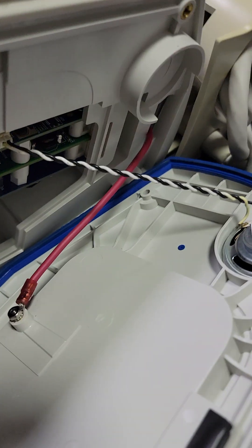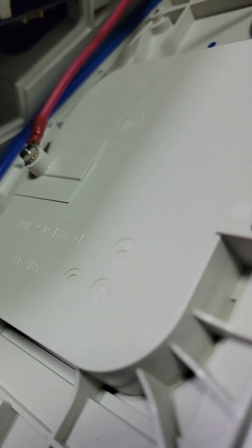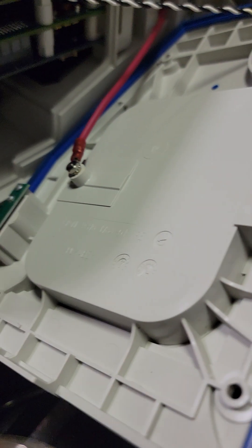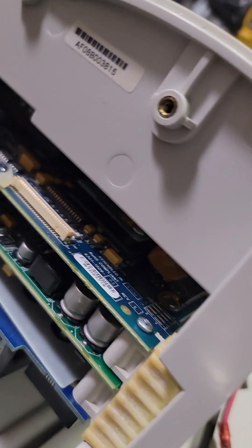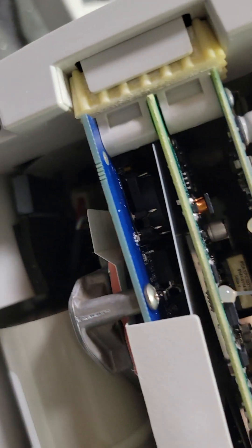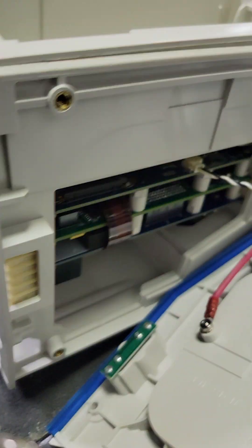Watch your little speaker cable here. You have to be careful with all these things when you're working on them. So these little kinds of little things, and if you haven't noticed yet, the manufacturer doesn't want bio-meds working on their stuff. Even with the right to repair, they're making it difficult.